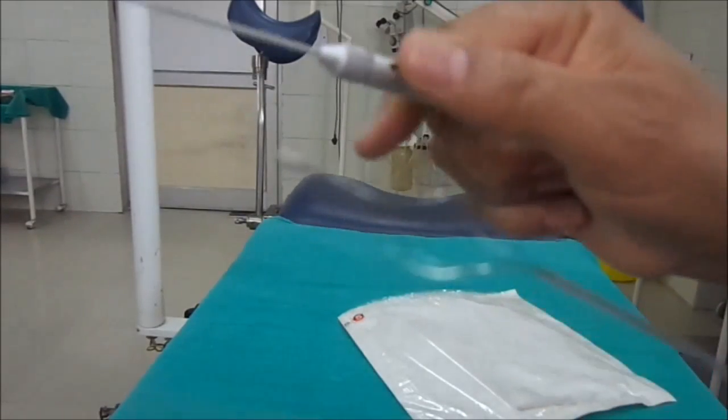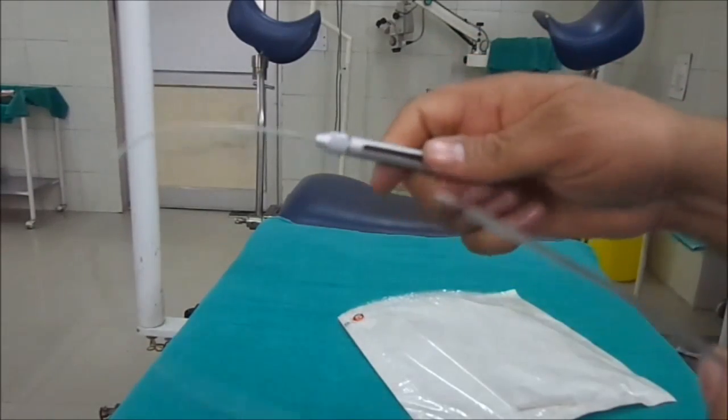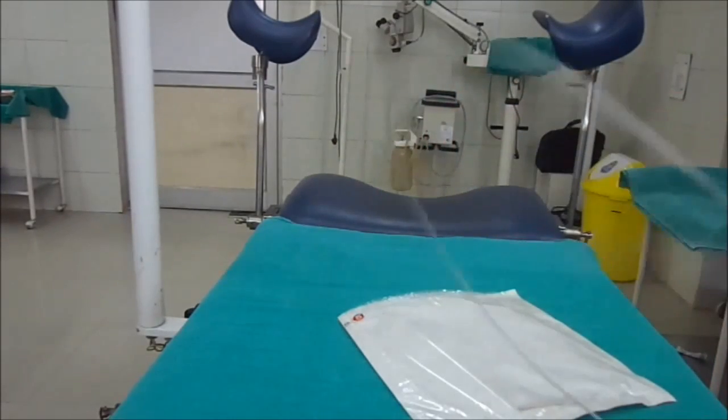As you can see, it can be opened and closed repeatedly — open, closed, open, closed — like that.